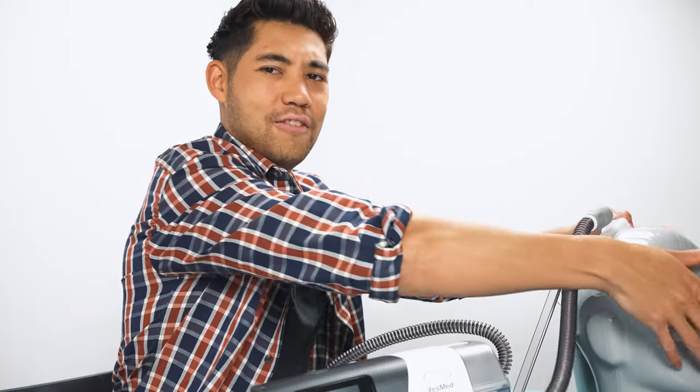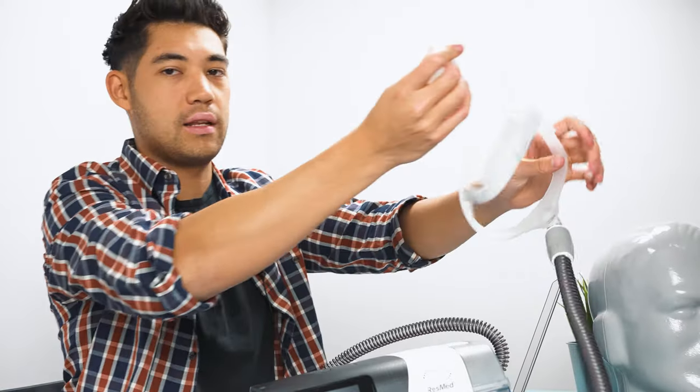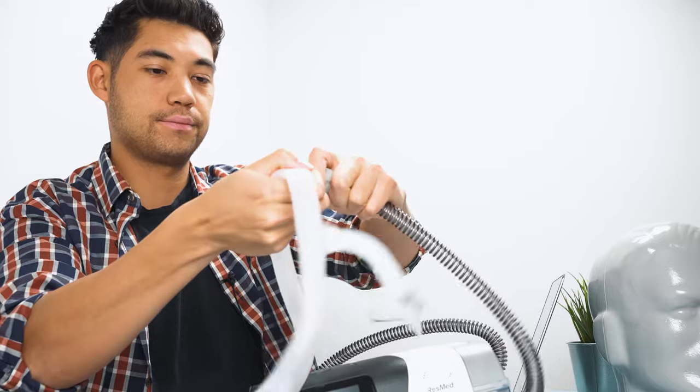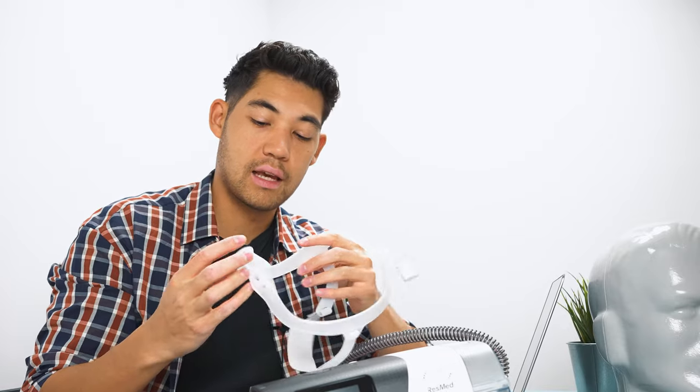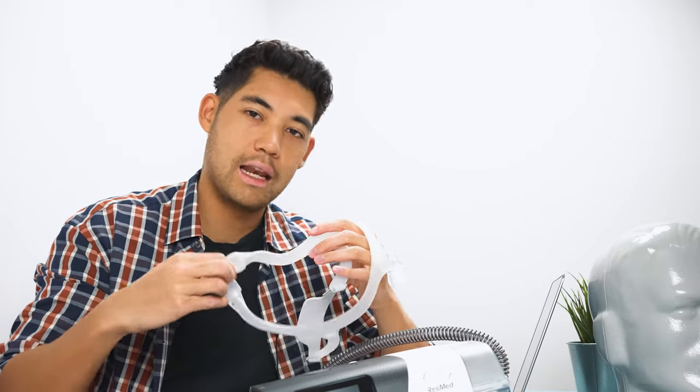Now, the next thing is cleaning and maintaining your equipment. If you find that over time, you're getting more and more leaks, you might not see it visually, but your oils and your sweat and stuff can wear out the cushions, wear out the pillows and whatever in your mask and stretch it out a little bit. And if that starts stretching it out, not just your oils and stuff, but just wear and tear, wearing it every day, that stretching out can easily create a leak.